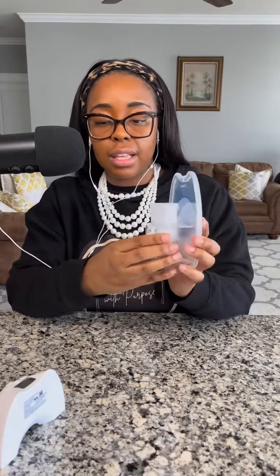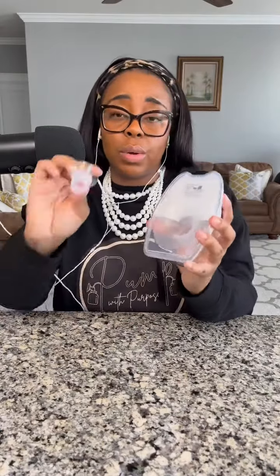Make sure that it is sealed all the way around — that will ensure that your milk stays put. It holds five ounces in this part here. The hub goes down and over the top; there's no click or anything, it just pushes down. I am a 21, so I did have to use an insert. You have to make sure to use one of the shorter inserts so that it does not cover the hole in any way. I did have to size down because that is my proper size.